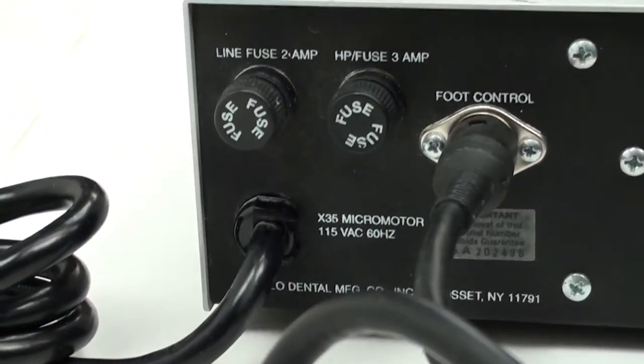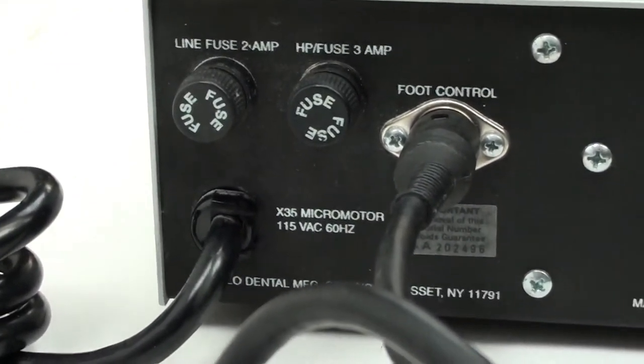Real quick, I'm just going to show you the back of the machine here, of the module. You can see the fuse, foot control, plug-in.